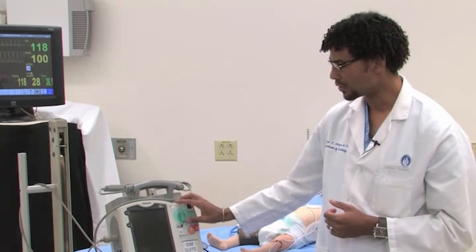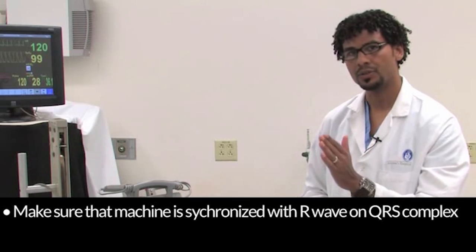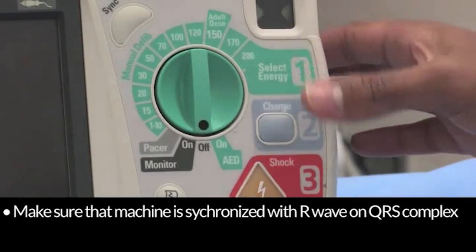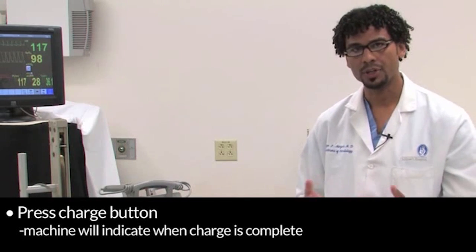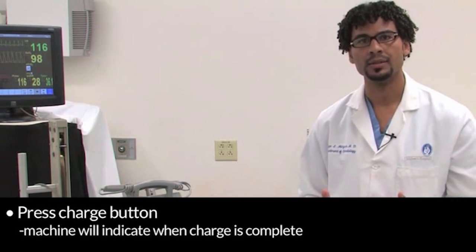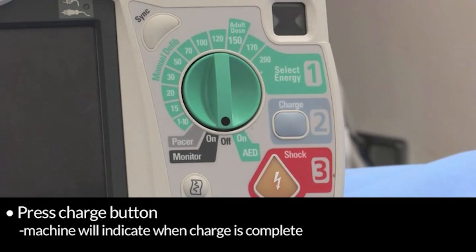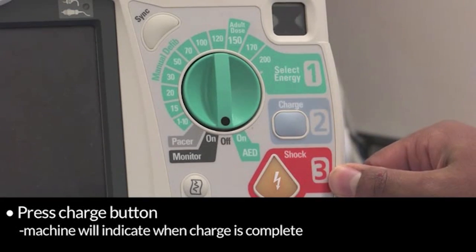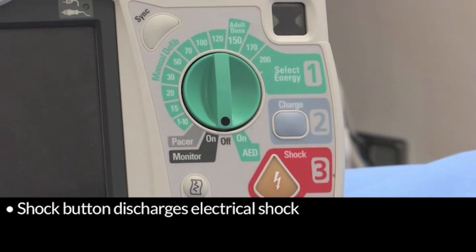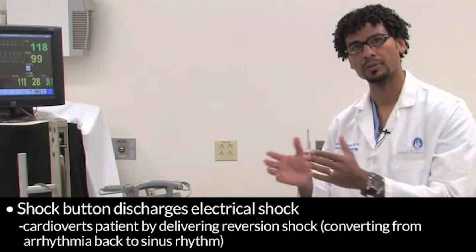Once your machine is on, you've pressed your sync button, and you've ascertained that the machine is synchronized with the R-wave on the QRS complex, the next button you need to know is the charge button. The charge button is pressed and the machine charges, indicating to you either by an audio cue or visual cue that it's ready to deliver the voltage. On this machine, the shock button lights up when we are ready to deliver a charge. The shock button discharges the electrical shock and hopefully cardioverts the patient by delivering a reversion shock, converting you from an arrhythmia back to sinus rhythm.